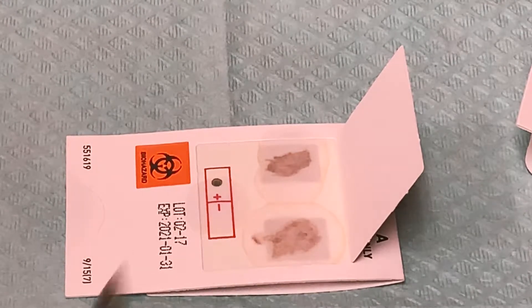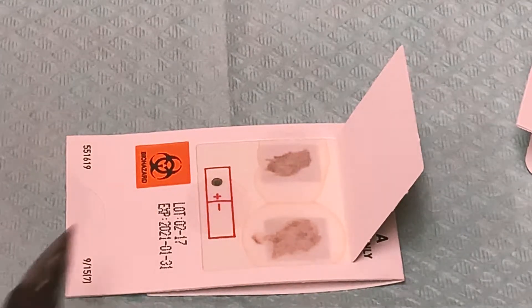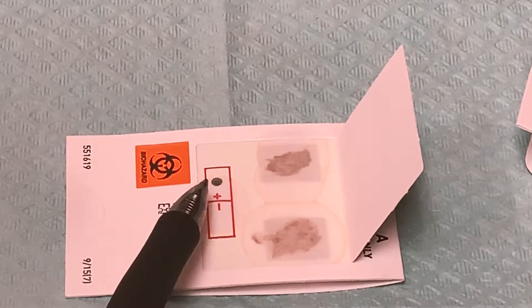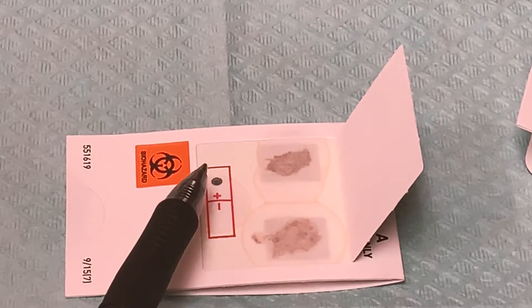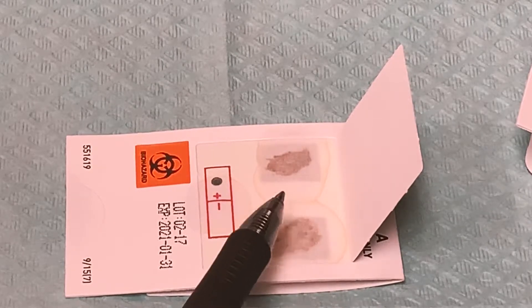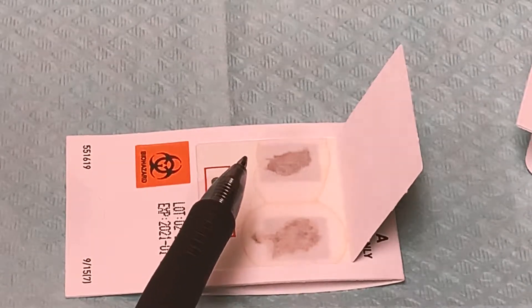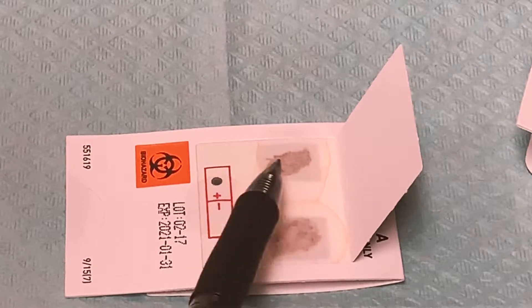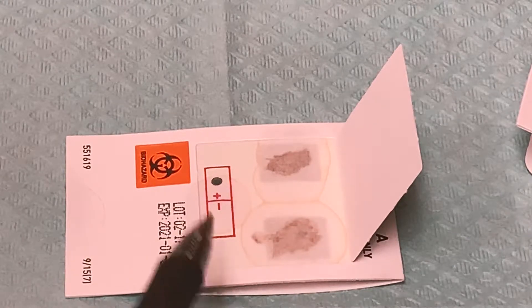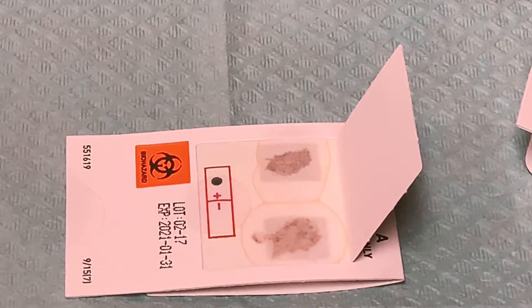The results here on the A and B squares are going to be negative because that is actually chocolate from a Starbucks Frappuccino. What we want to watch for is the positive box turning a teal blue color, indicating a positive result. If this were actual stool and the patient had any occult blood — blood undetectable to the naked eye — it would show up with a blue ring around it, the same color as the positive result shown here. That is how you do the fecal occult testing.